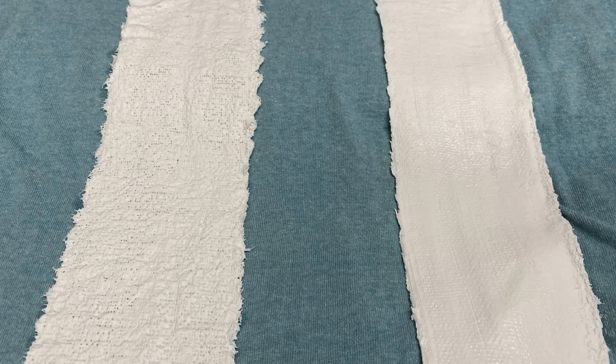Here is a close-up of some plaster that has been dipped. On the left is plaster that has not been stretched or squeegeed — as you can see, the plaster has wrinkles and is not smooth. On the right is plaster that has been stretched and squeegeed. Doing this fuses the sheets of plaster together making it a solid slab, and removes any wrinkles making the plaster smooth.